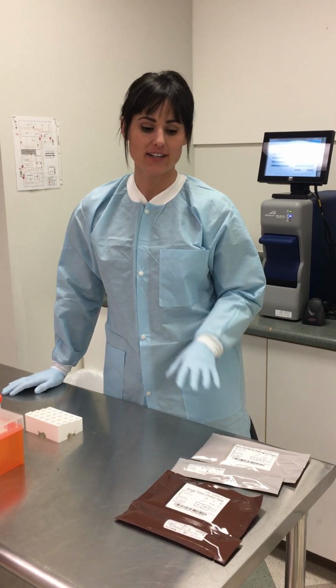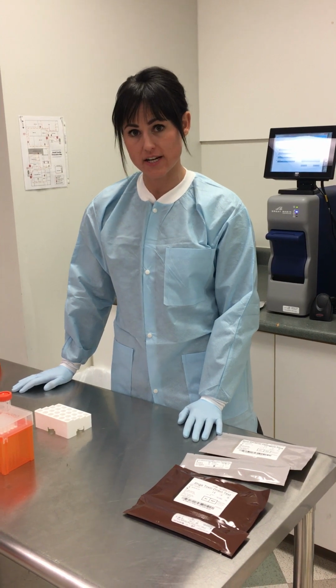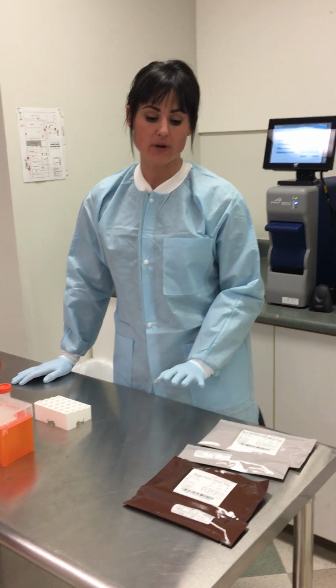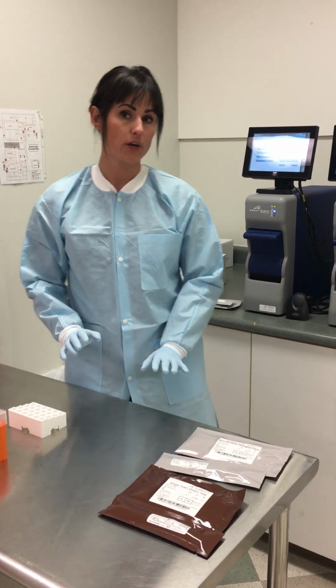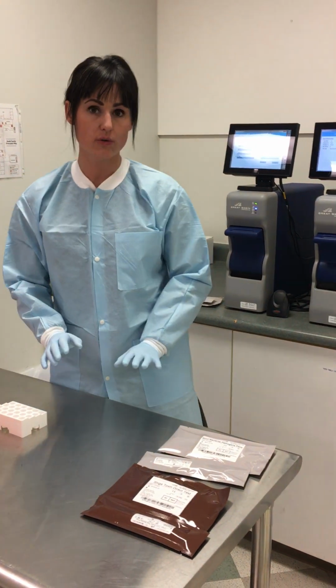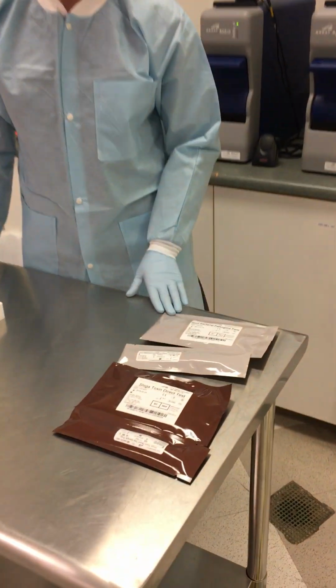Hi, I'm Jamie Purcell, and I'm here for you today to demonstrate the Great Basin products, specifically our enteric products, how these products work and what our sample flow works like. So this specific workflow applies to two commercial products, the Shiga toxin direct test and the stool bacteria pathogen panel.